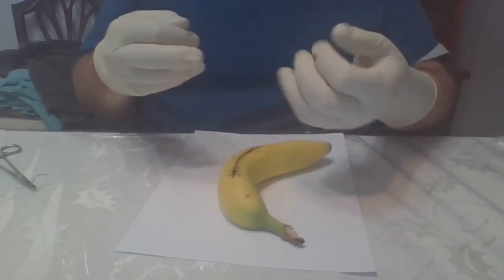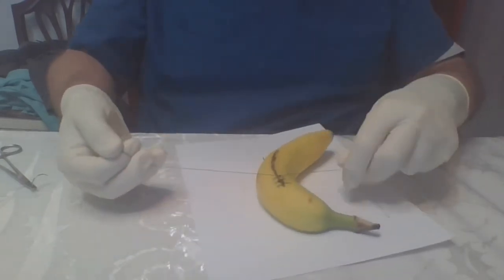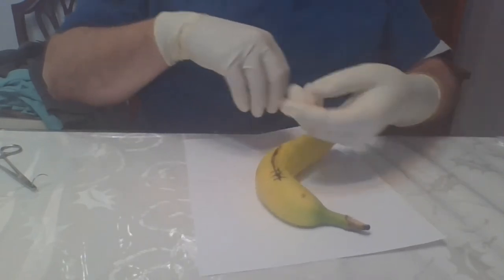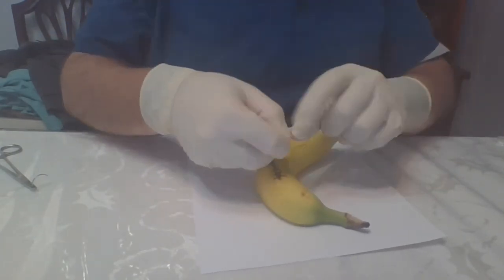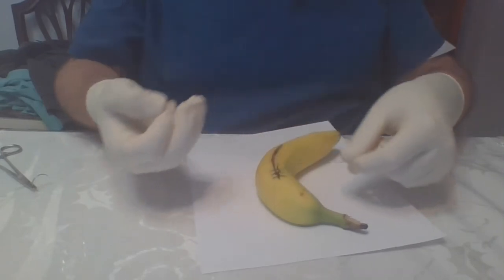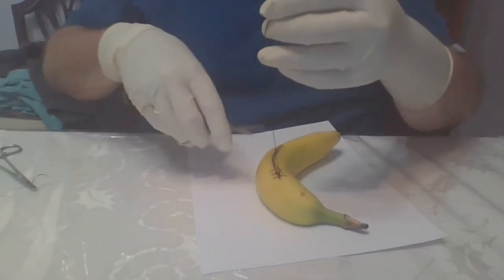But you never know when you might have a banana that needs some sutures put into it. So, ooh, I got that one a little bit better. Just remember, if you have a choice, I would make banana bread instead of suturing the bananas. But anyway, it is a good use of, it is one possible use of banana.